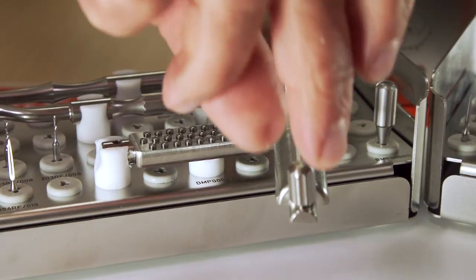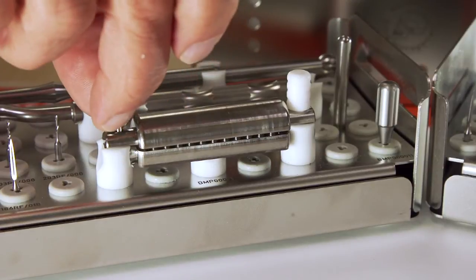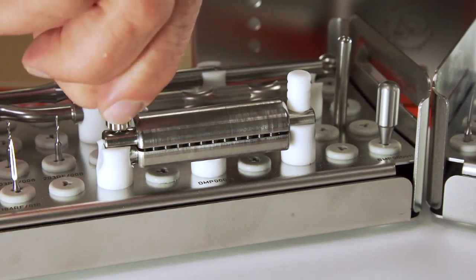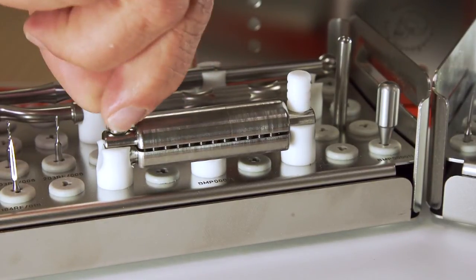For easy cleaning and sterilization, the pins can be securely positioned and locked into place by screwing down the lid closure.